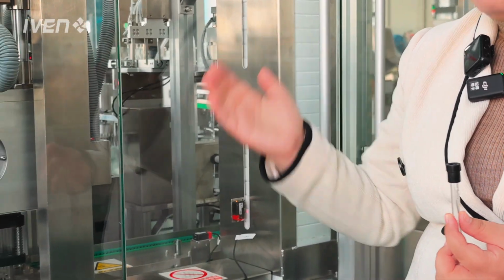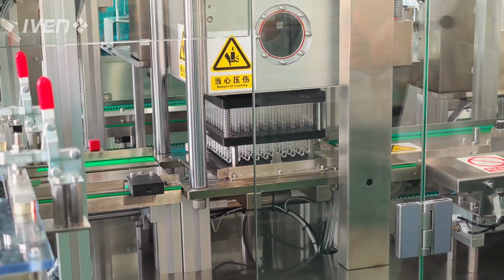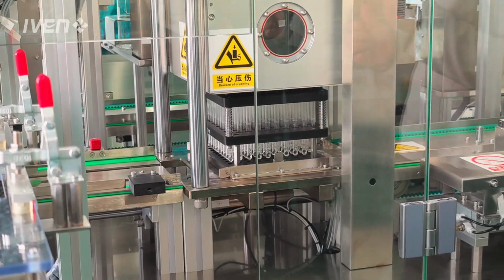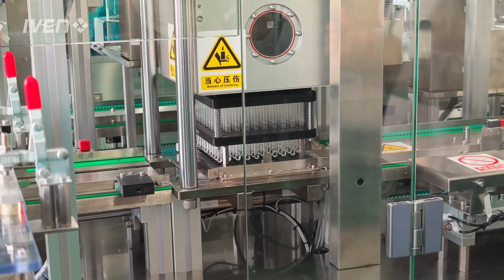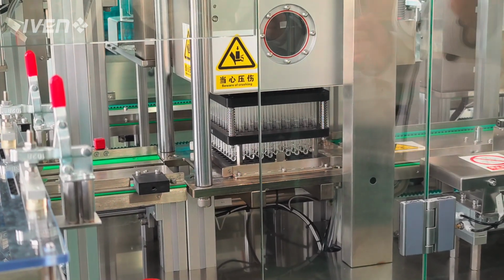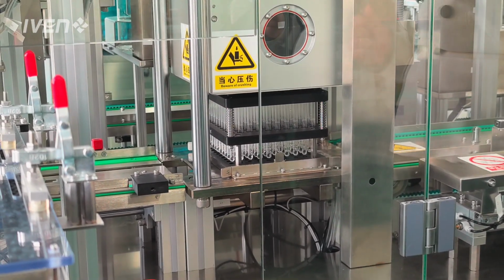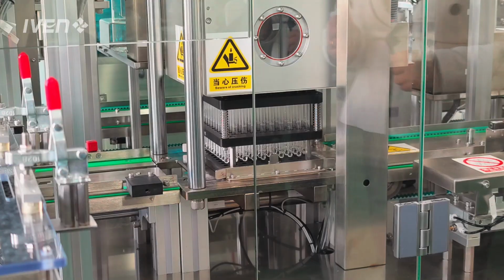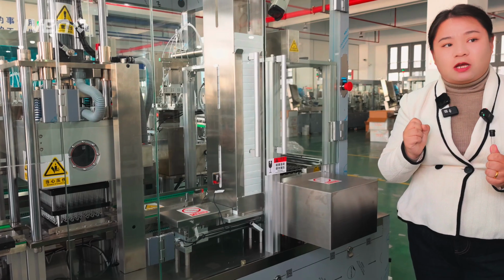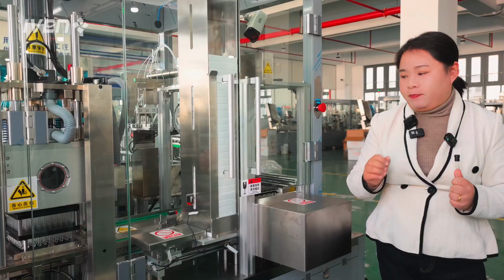Finally, this vacuuming accuracy will directly influence the final blood collection volume. So vacuum accuracy will affect the final performance of the products. We provide highly controlled instruments for the accuracy of vacuuming, which is very important, to make sure the final product's blood collection volume is fully accurate and qualified.